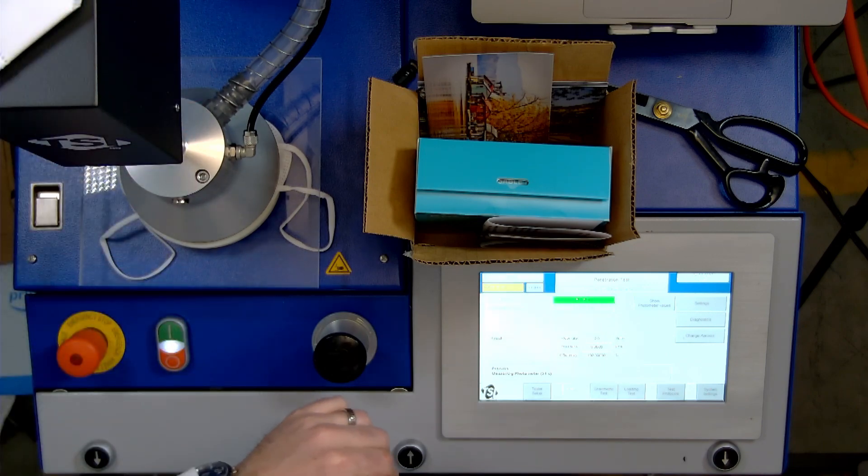We'll keep that there for reference. I can't try it on because you only sent me one. Come on. Send me more than one if you can.